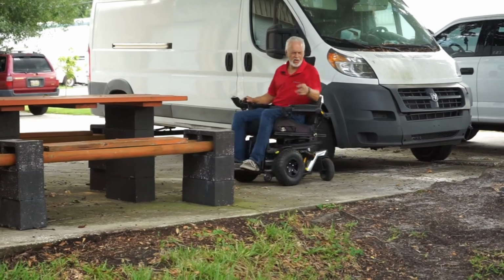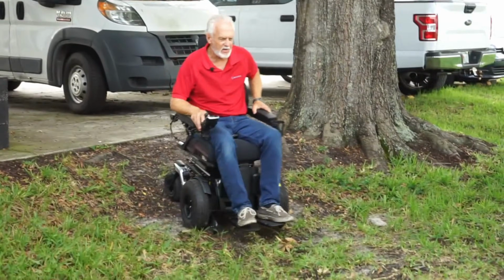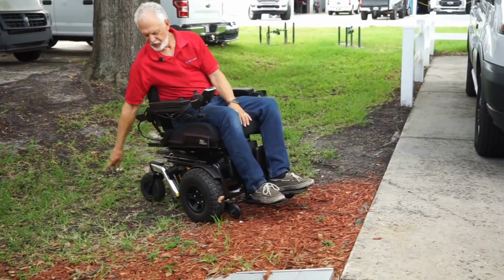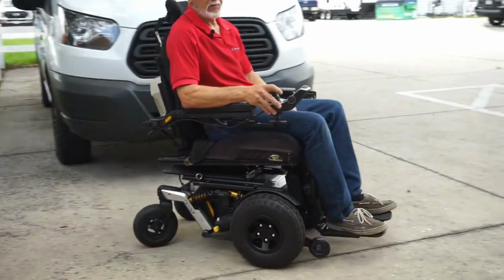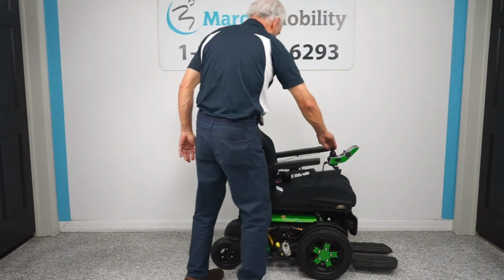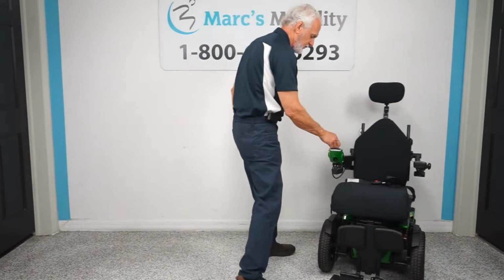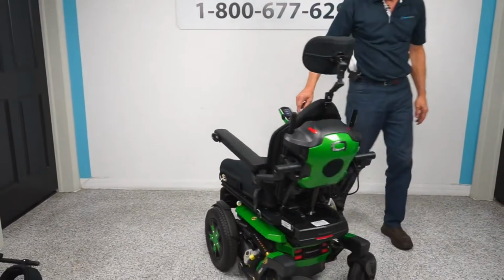And you are going to have caster wheels in the back of these units, but the caster wheels are designed differently than on the mid-wheel drive units. They're typically a little wider and a little bit taller, so they're going to have better traction when you are driving outside. Now, a front-wheel driven unit is going to take at minimum 3-4 inches of a turning radius more than what a mid-wheel unit takes, just based on where that front tire is located.